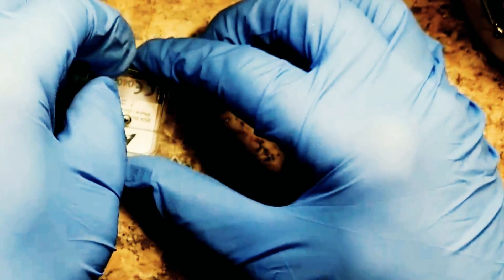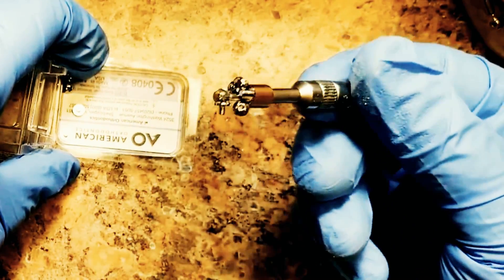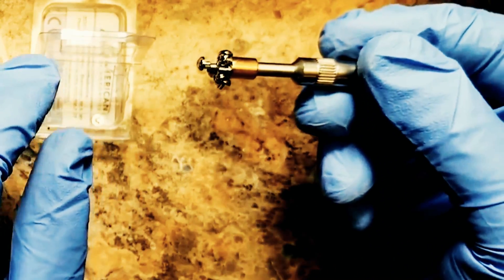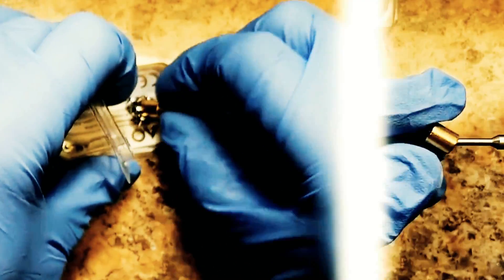In this next quick demo, one of my doctors was describing that having a magnet can sometimes be pretty dangerous on an orthodontic tray. If you have your brackets all set up, you can see that the magnet will grab onto anything and it could cause a lot of issues. So definitely keep your brackets away from the magnet.